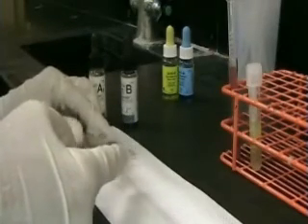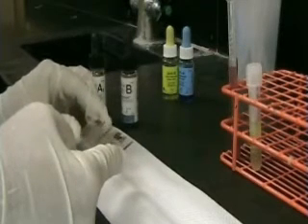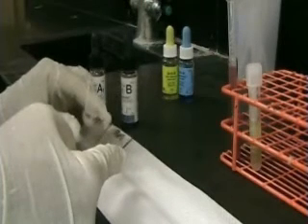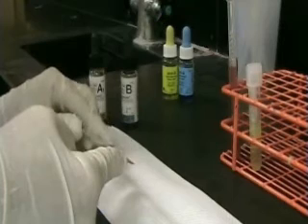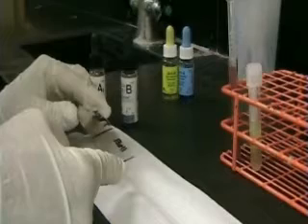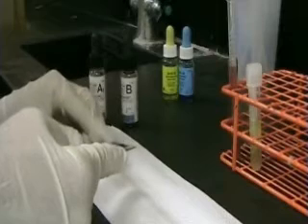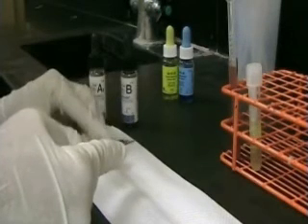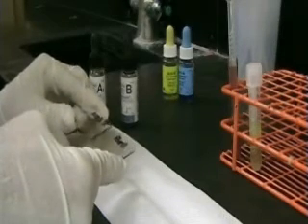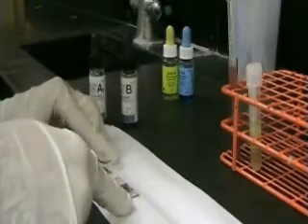According to Landsteiner's rule, if the antigen is present on a red cell, the patient will not produce the antibody. Conversely, if the antigen is not on the red cell, the patient can produce the antibody in the plasma. This is the reverse group test of an ABO typing.